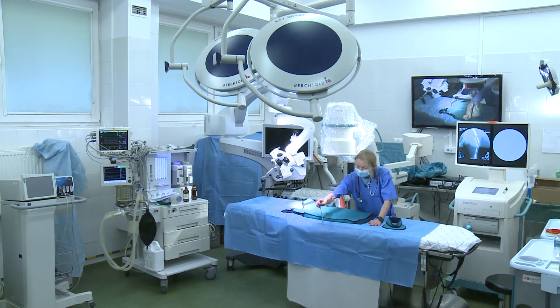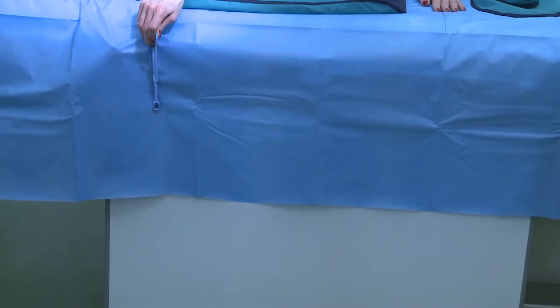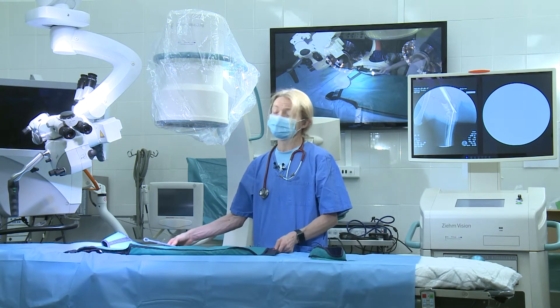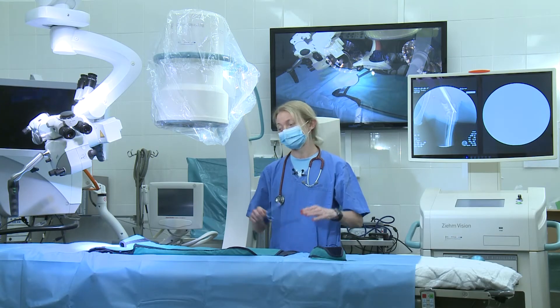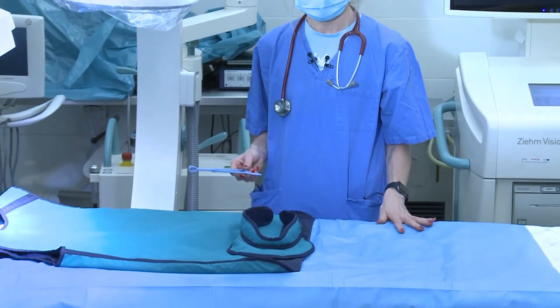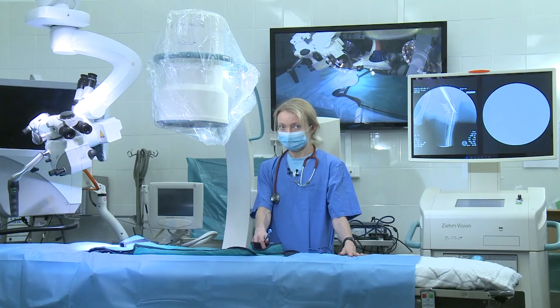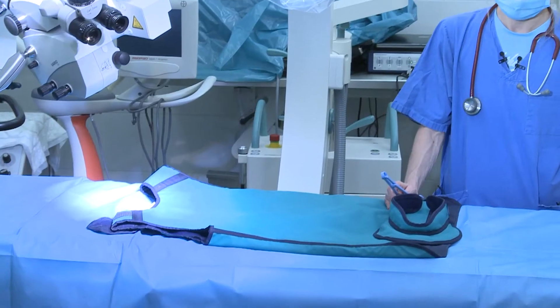This machine is very modern, but apart from that it still produces X-ray. This device and all this equipment is so well designed that here you can observe a special shield which fights with X-rays and covers your legs and the rest of your body. So please remember: if you want to do any kind of X-ray, whether stationary or dynamic during surgery, you have to use special aprons and special radiopaque shields which stop the X-ray radiation.